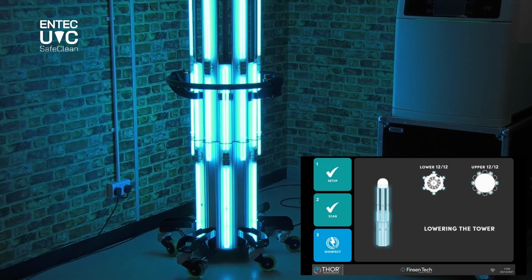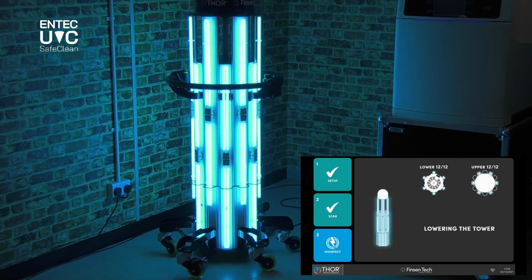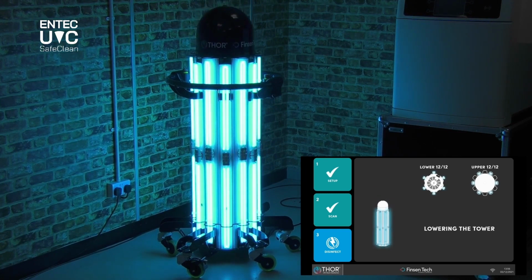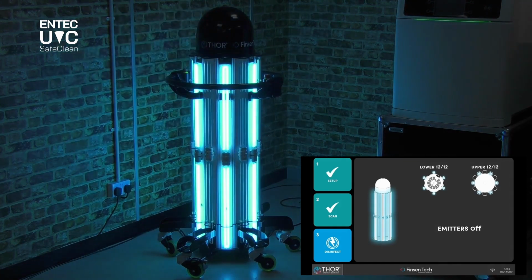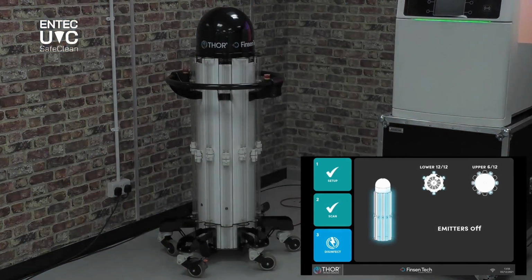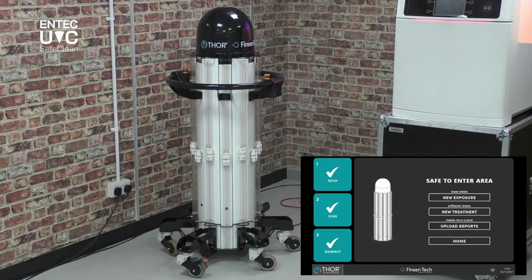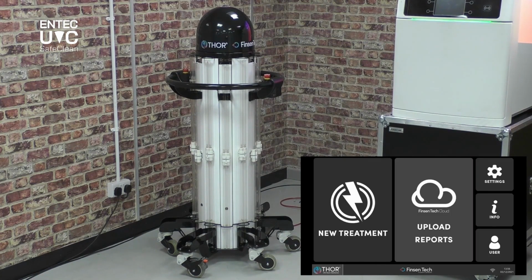So now you can see on the screen that the countdown's reached 0 and the tower is lowering. As the tower lowers, you can see that the lamps are still remaining on and powered on, and now you will see that they will begin, once the system is satisfied all criteria has been met, to power off. And they power off pair by pair by pair. There we go. So now the system will tell me the exposure is complete, and next tells me I can re-enter the room. And the cycle is complete. And as you can see on the screen, we now simply say cycle complete, back to the home screen and on to the next area.